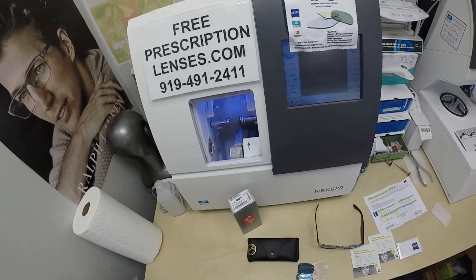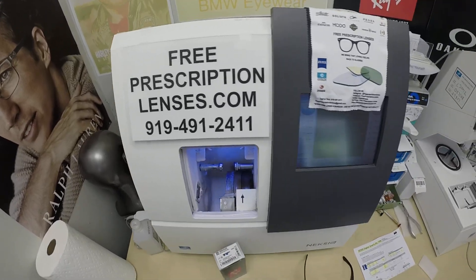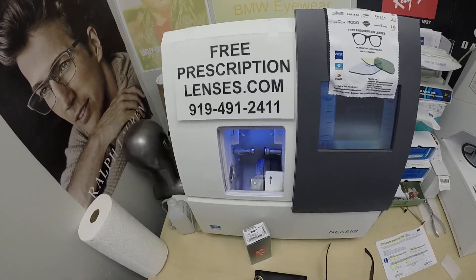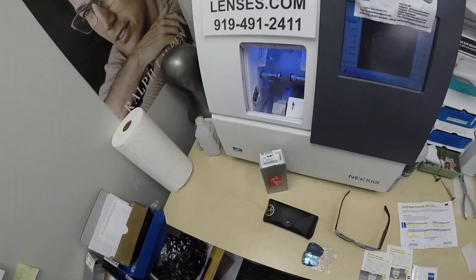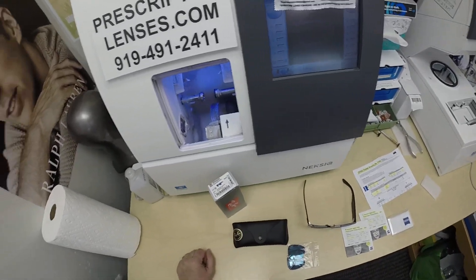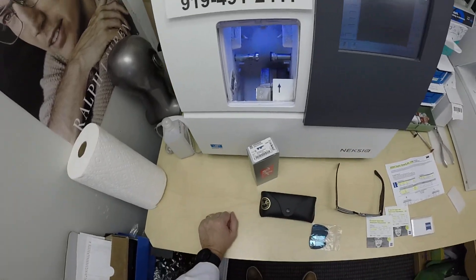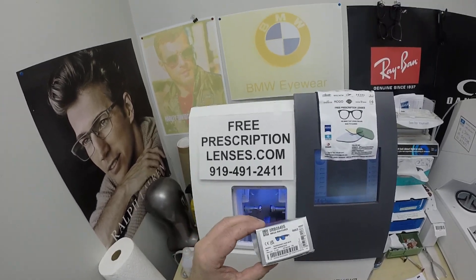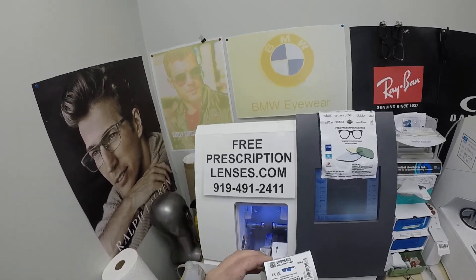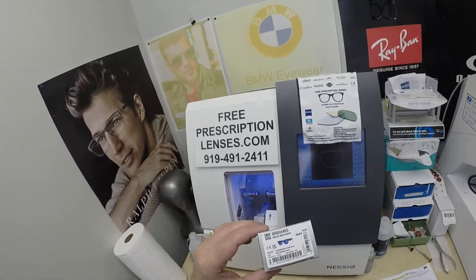Hello everyone. Special thank you to Angel in Manville, Texas. This is freeprescriptionlenses.com, where everyone loves a bargain and no one is disappointed with quality. I am the optician behind the lens. My name is C. More Better, but call me Mo — Mo Better — because I might be seeing Mo Better and showing everyone else how I bring that loving feeling back to glasses when I show you Angel's Ray-Ban 0840S, the Mega Wayfarer.